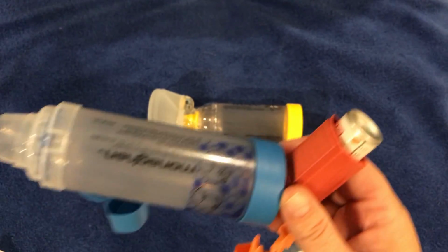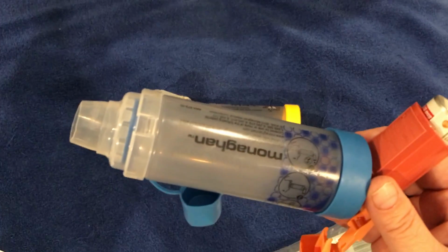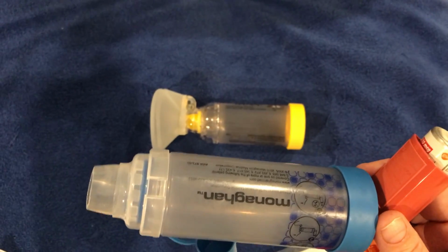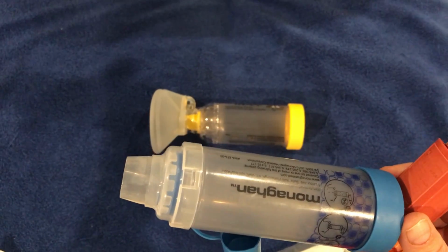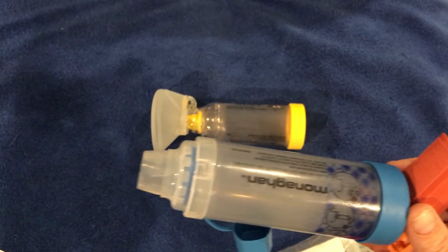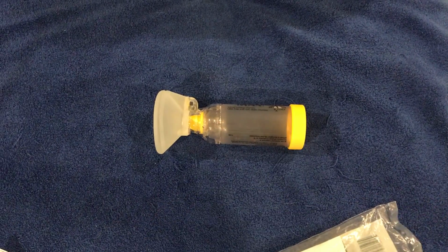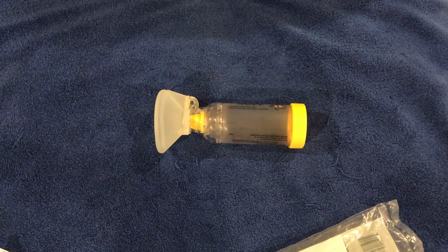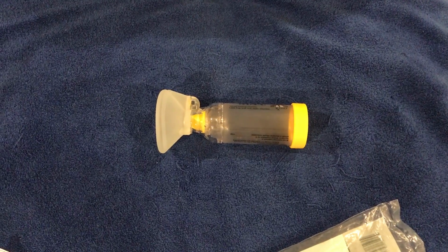It's important to teach the patient that he has to wash his mouth after he takes the medication. This will remove the medication left in the mouth and prevent thrush. He can rinse and throw away the water, or he can also swallow, but the important thing is he has to swish some water in his mouth.